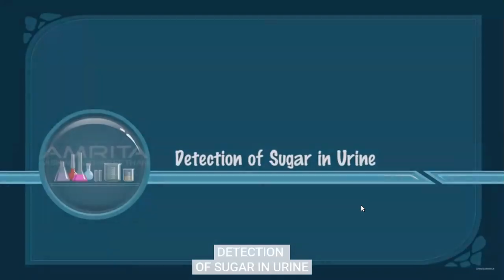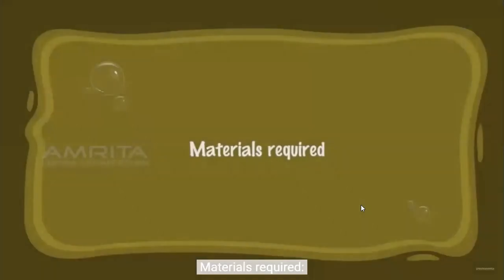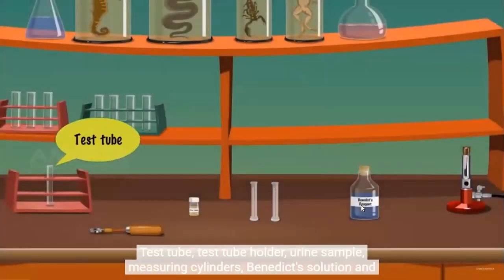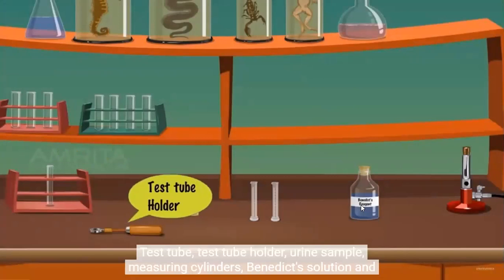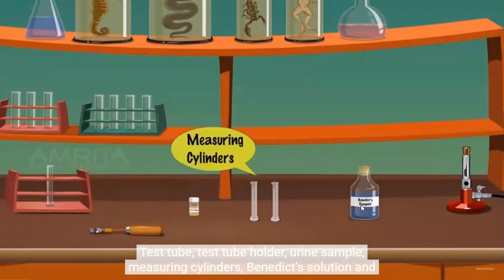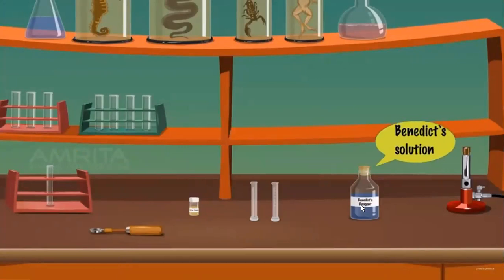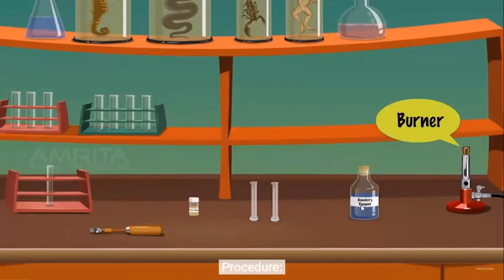Sugar in urine. Benedict's test. Materials required: test tube, test tube holder, urine sample, measuring cylinders, Benedict's solution, and burner.